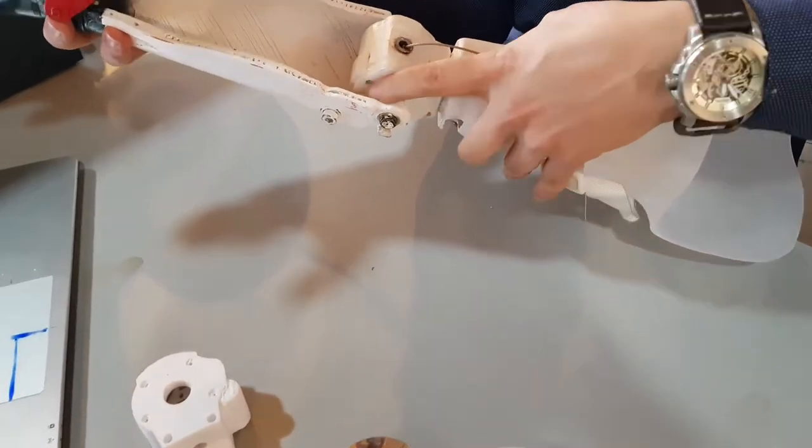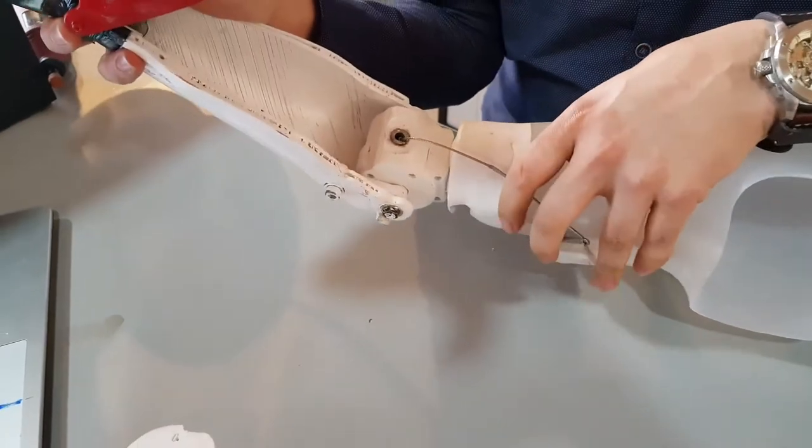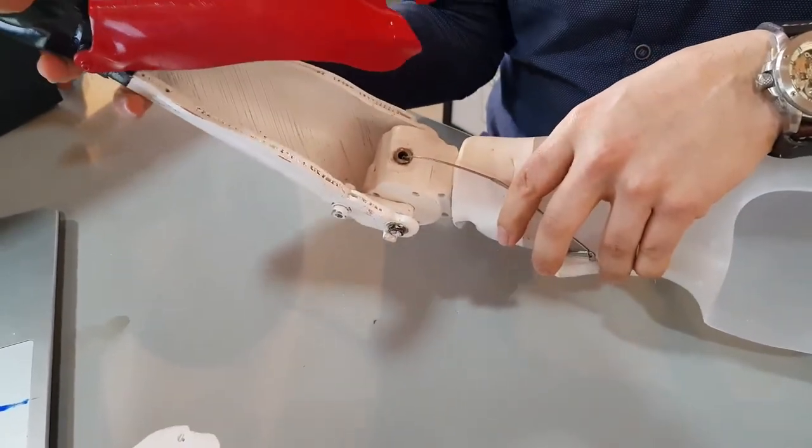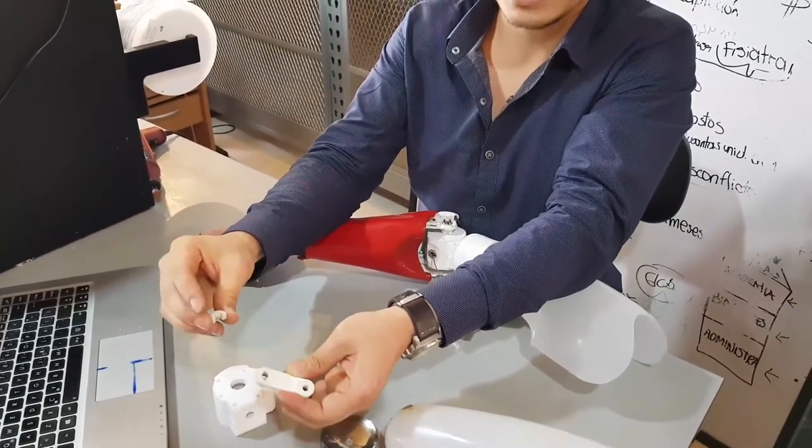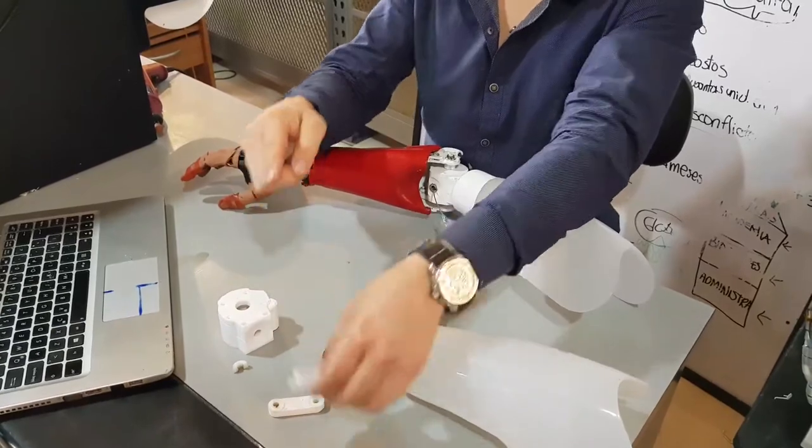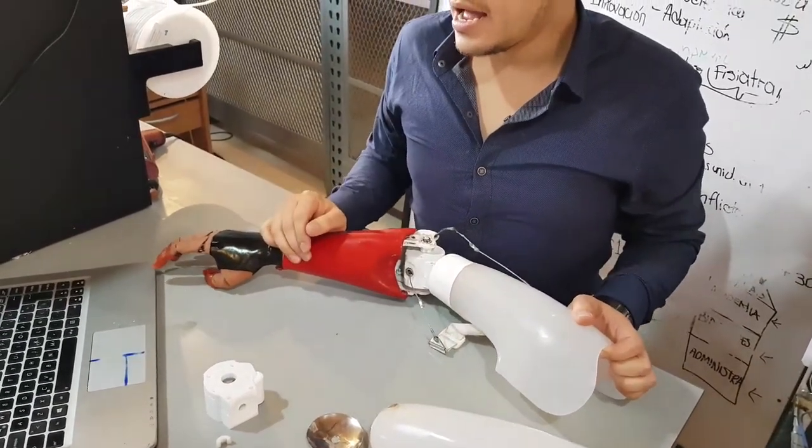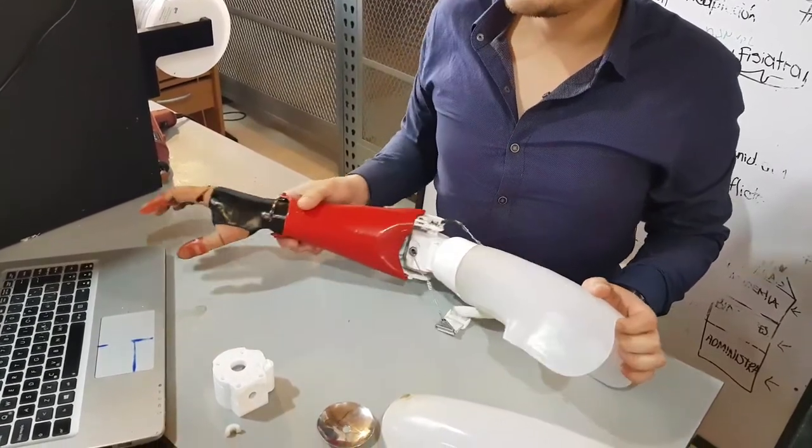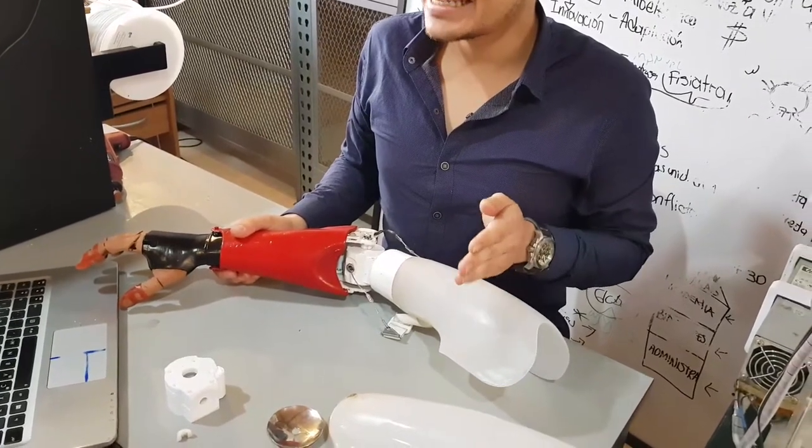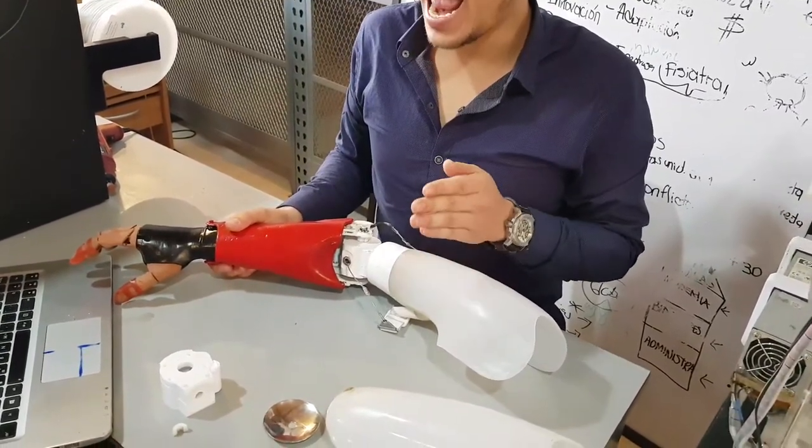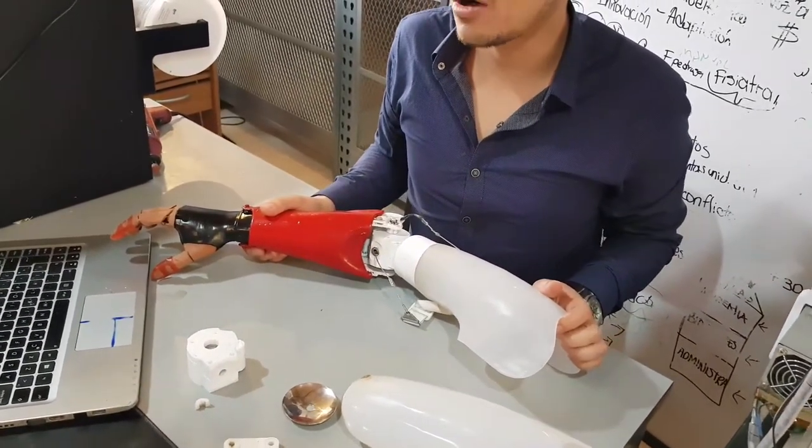With this bar you can set the position between the forearm and the elbow, and it must be 3D printed in a special direction to prevent shear stress and torsional stress. The bar is printed inclined in the planes ZX, ZY, and XY to allow the forces to be distributed better along the bar.